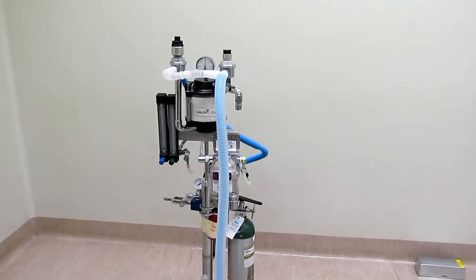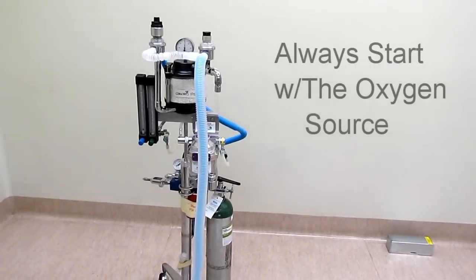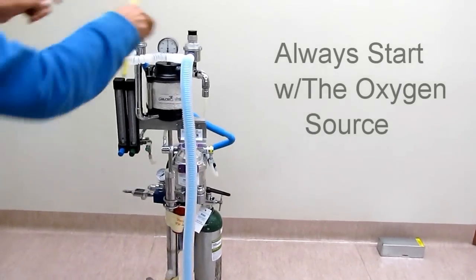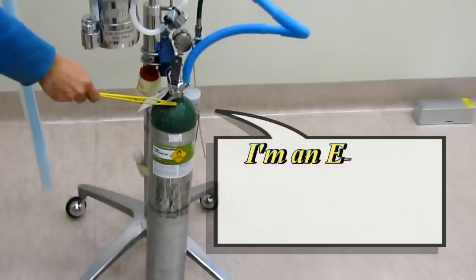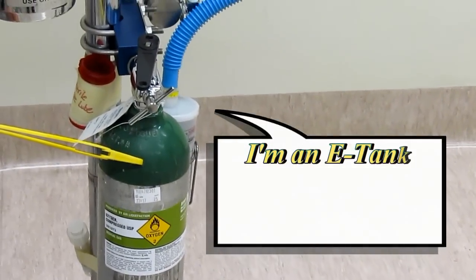First thing to do when you approach an anesthetic machine is to start with the source of oxygen, then follow the oxygen through the machine as though you were a particle of oxygen going through the machine. So the first thing to look at here is that we have an E-tank. An E-tank is a portable tank that carries oxygen into the machine. It's usually attached to the machine.